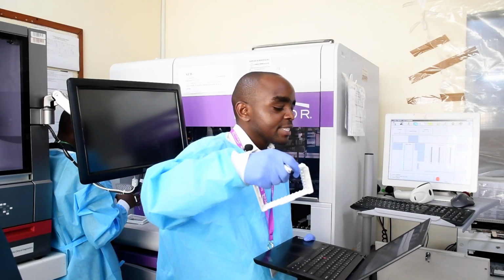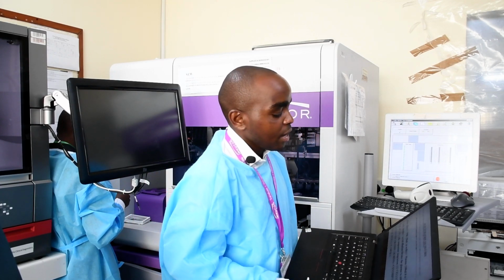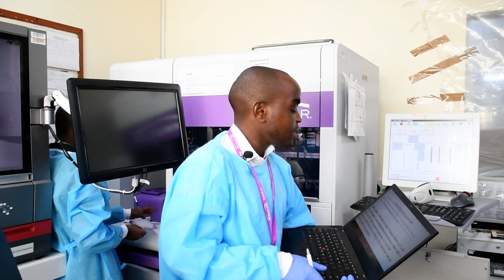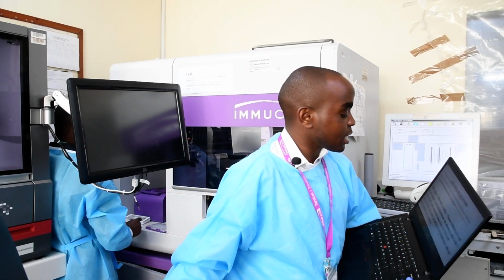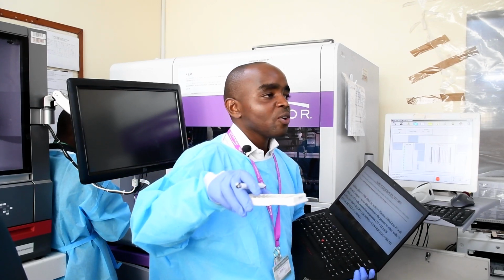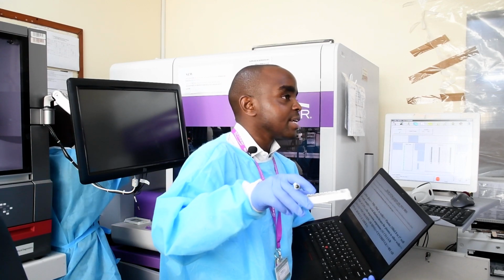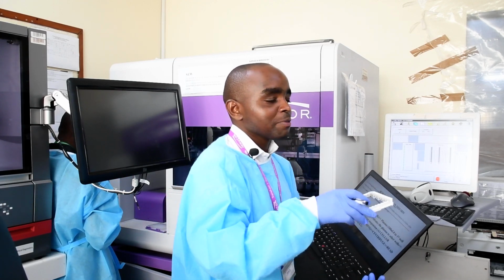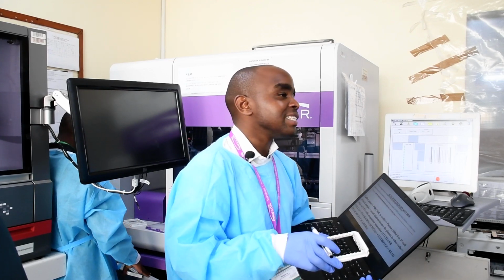Then it does the serial dilution automatically using its pipettors, titrating the plasma to the other wells, and then adds 15 microliters of a 3 to 5% cell suspension of either A1 cells if you are doing anti-A, or B cells if you are doing anti-B. Remember, this cell suspension is made with the specimen diluent. Then it will incubate, then centrifuge, and then you will find your results.